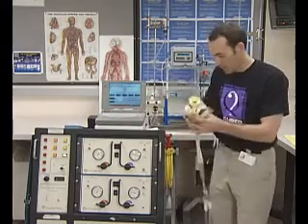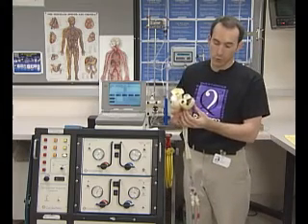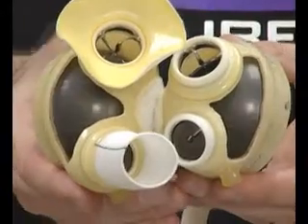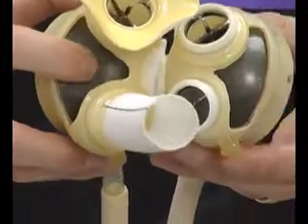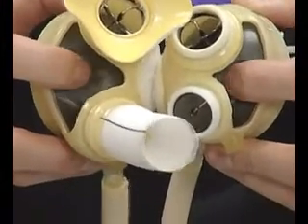It's going to start pumping. The device is now pumping, and what you're looking at here is an internal diaphragm in the device on both sides. As that compresses, I can push my finger down on the diaphragm, and then it pumps back up against my finger.